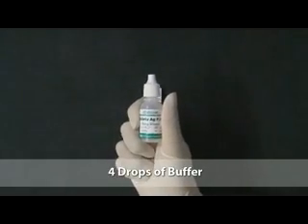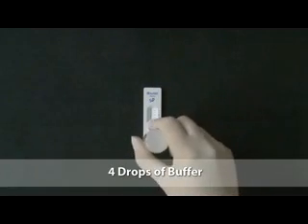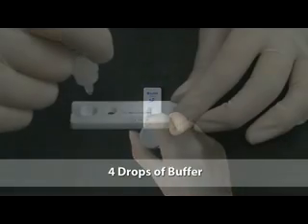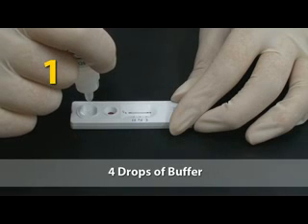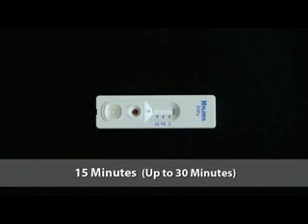Discard the inverted cup or capillary pipette immediately in the sharps box. Add 4 drops of buffer into the square buffer well. One, 2, 3, 4. Wait a minimum of 15 minutes and up to 30 minutes. Do not read the test result after 30 minutes. Reading too late can give false results.